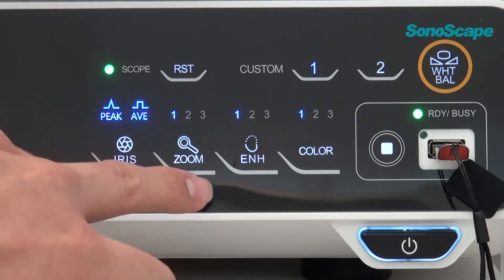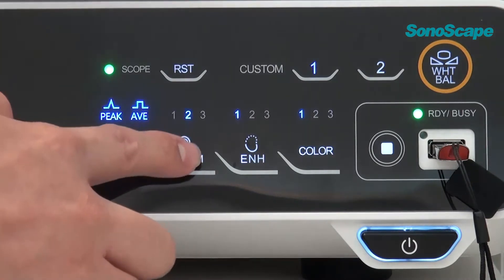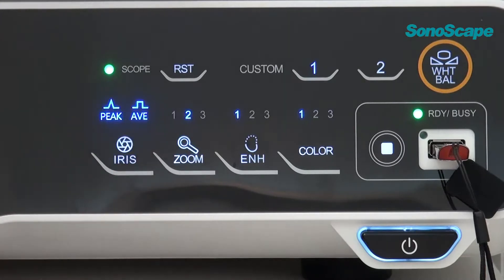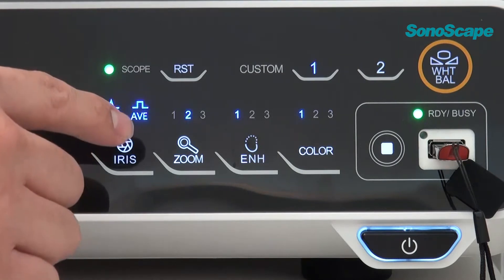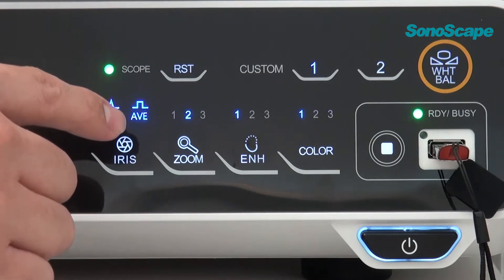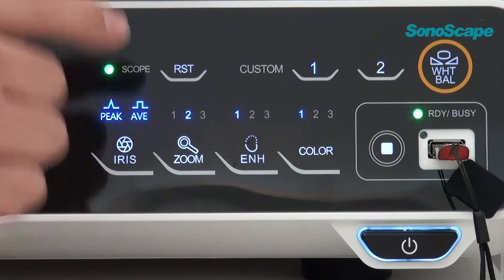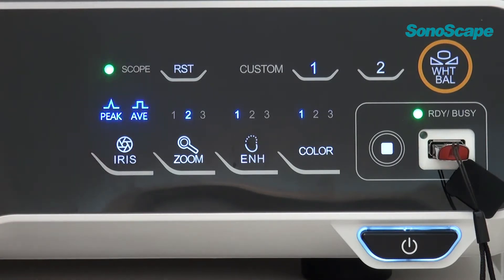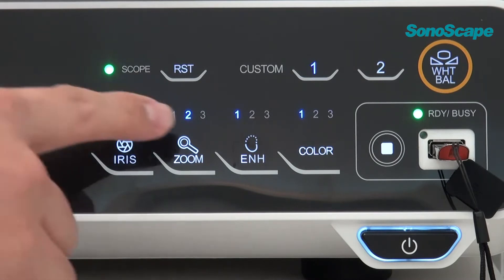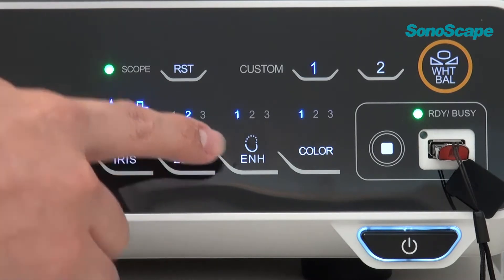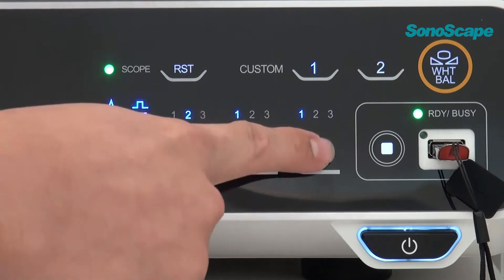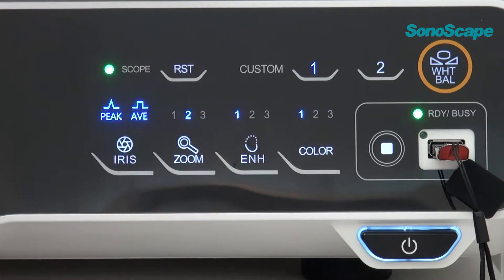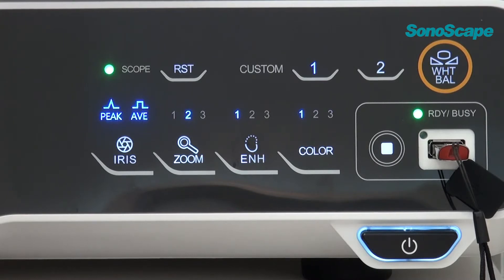Zoom is for image magnification. We can make it for four times at maximum. But usually, two times for digital magnification is enough for clinical application. Enhancement has three modes. It can increase image sharpness. Color enhancement is mainly for the color of hemoglobin. It will enhance the contrast between red and white color.